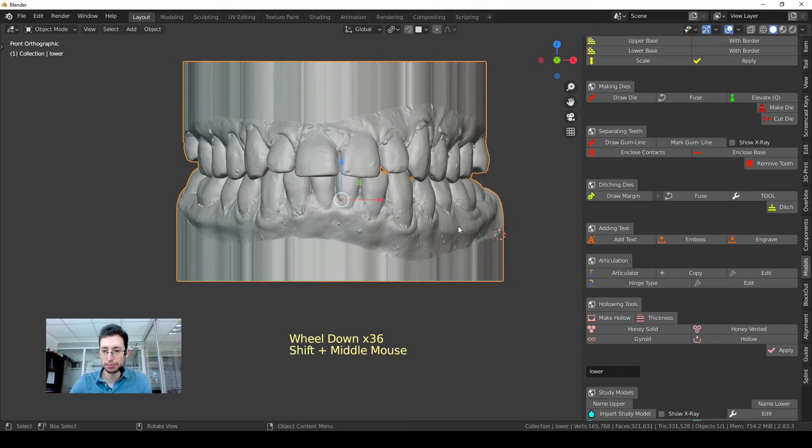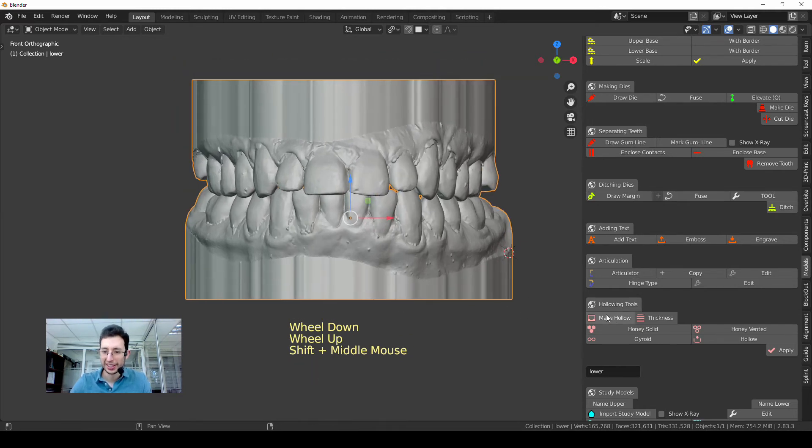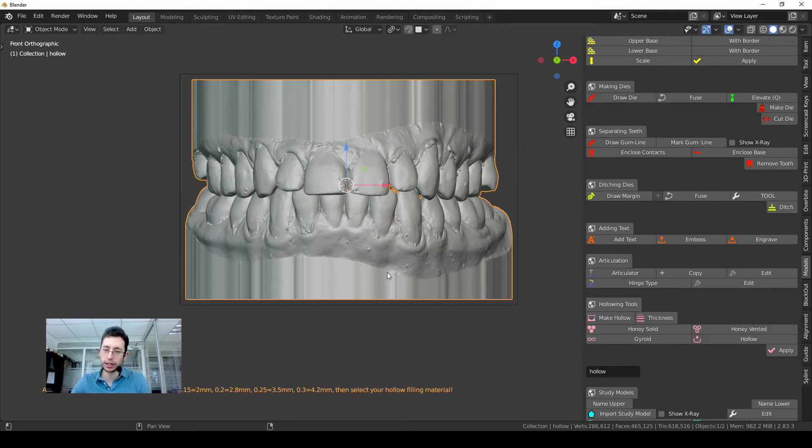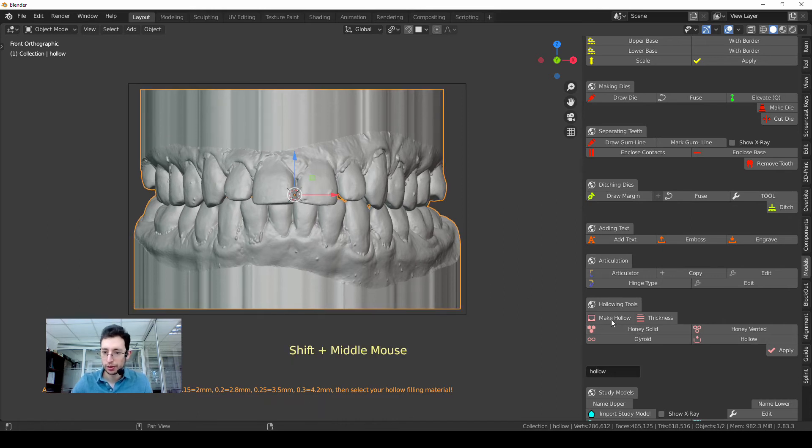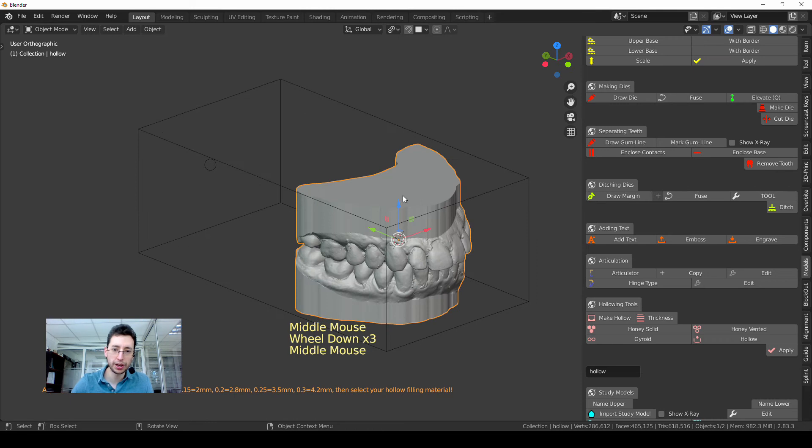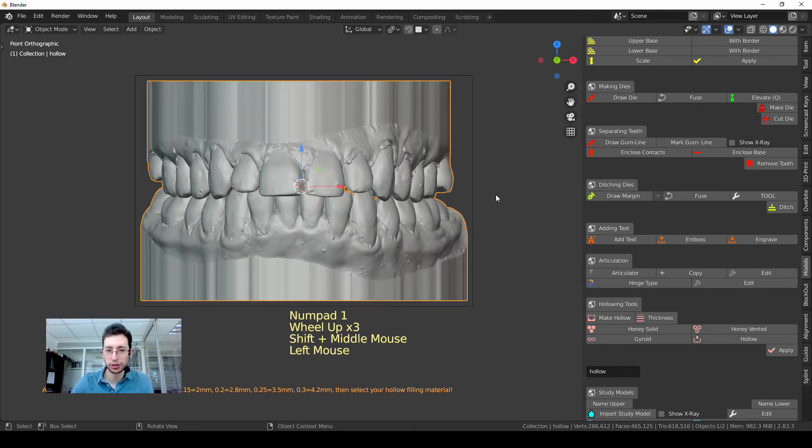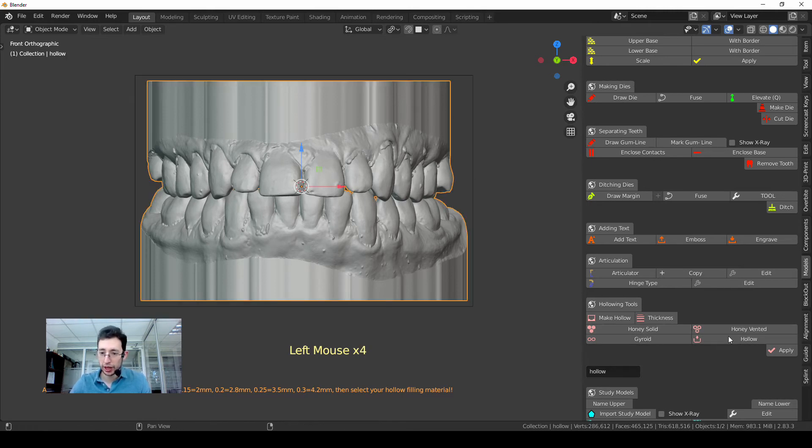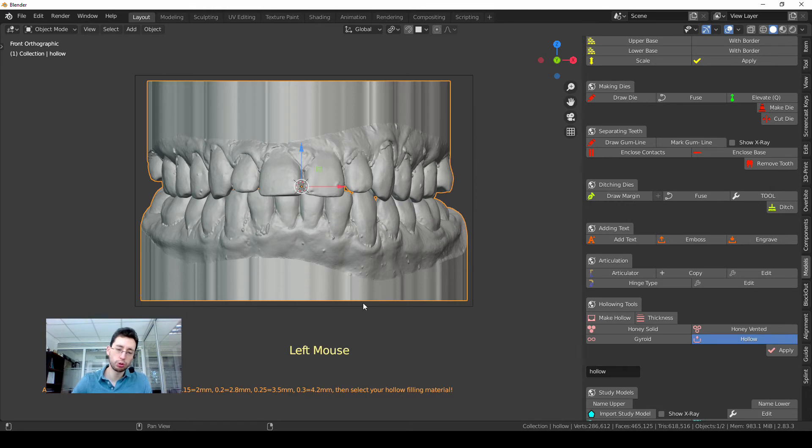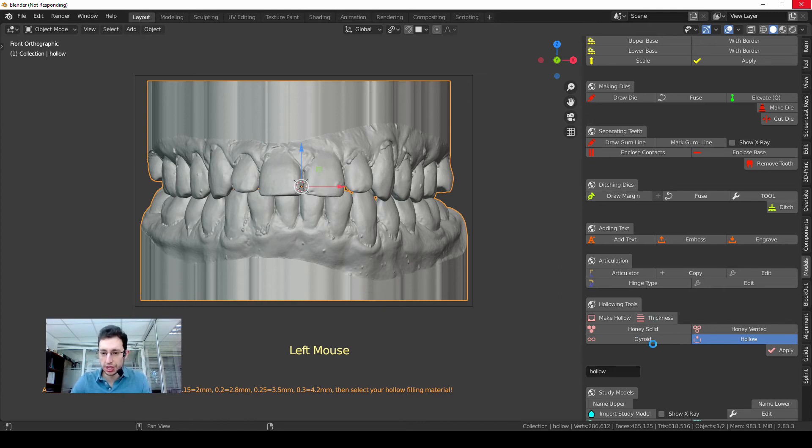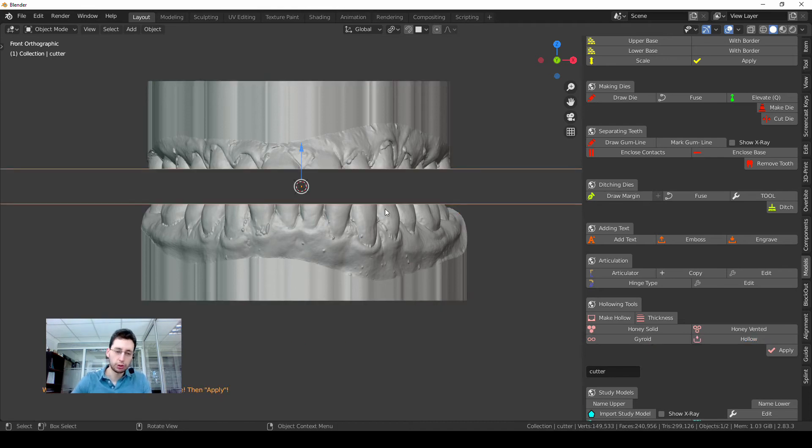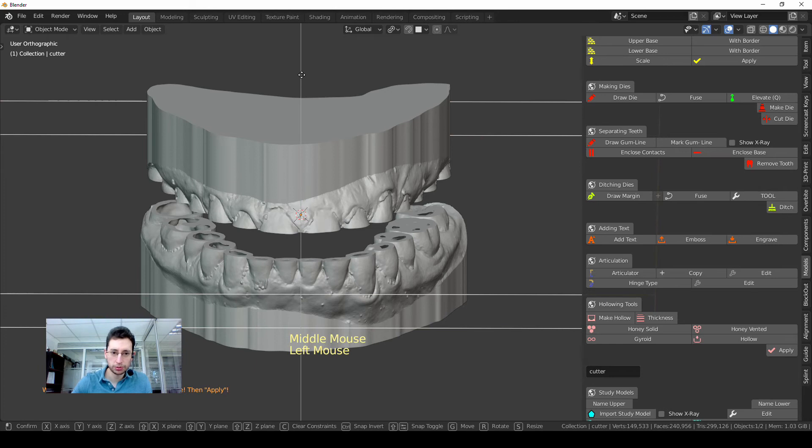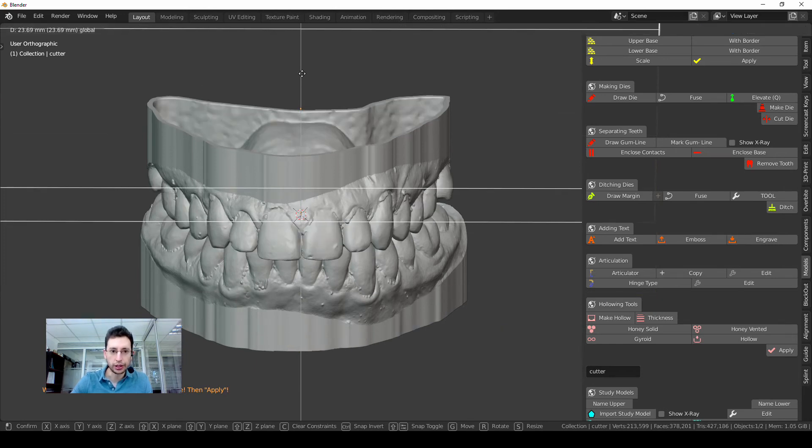So now I will use this tool which is Making Hollow, hollowing tool. I press the first button that is Make Hollow. Always in Model Designer, the tools are used from up to down, left to right. So first button is Make Hollow and this cube will appear around my model. That means we are doing just fine for now. Next step is to press any of these cutting tools that will make different shapes inside the model. I will use just the hollowing tool to make everything inside the model disappear, clean. You can try all those different shapes to see how they look, but hollowing just works perfect for me right now.